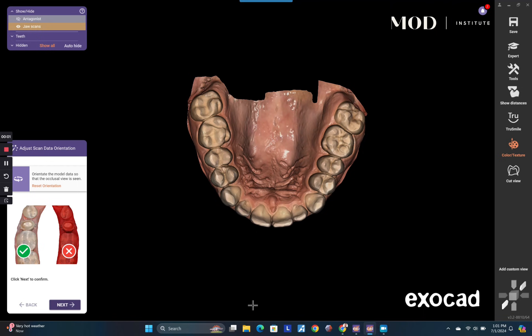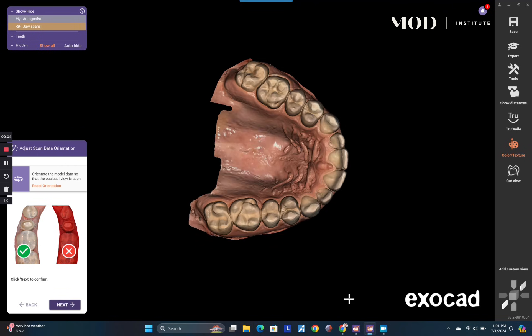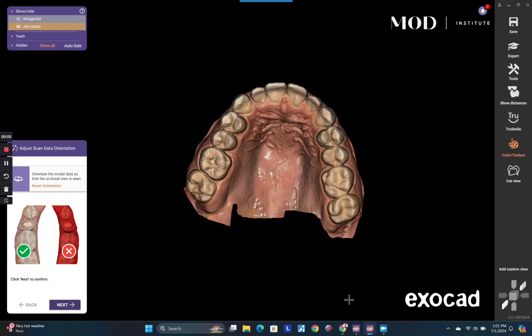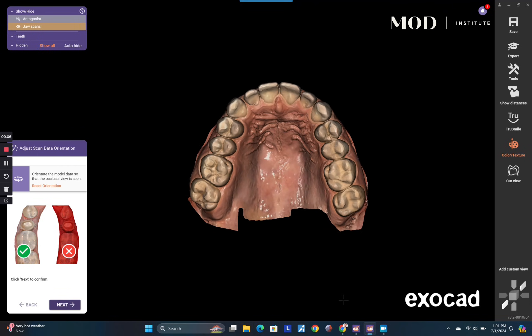You would first set this case up as a mock-up. You're going to follow along in the wizard, and what you're going to find is that the software is going to talk you through exactly how to do this.